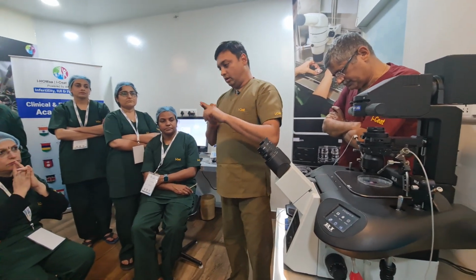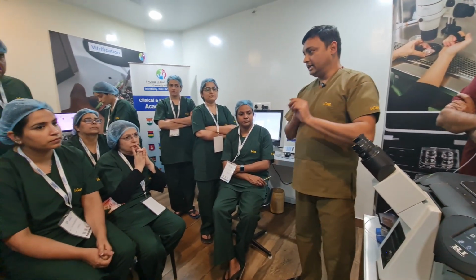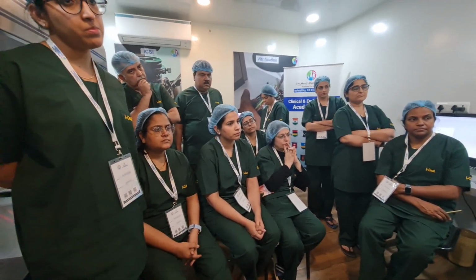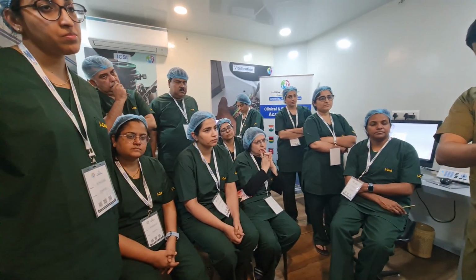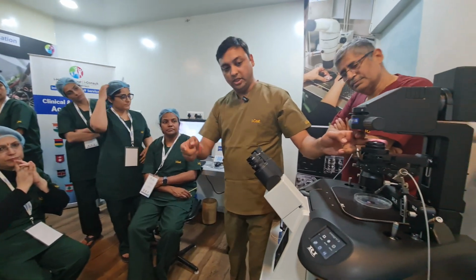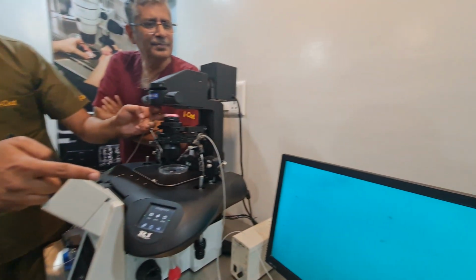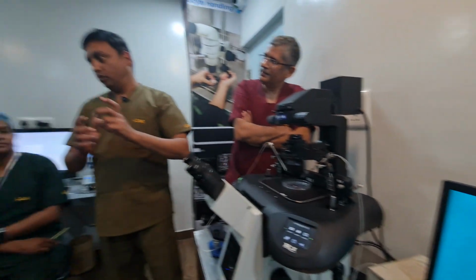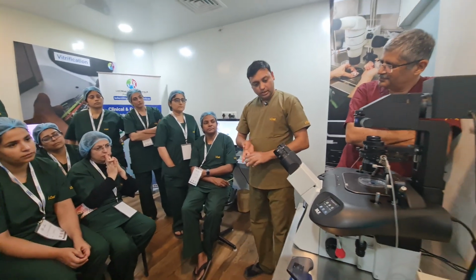If we go for Nikon or Olympus, the parts will be the same. The condenser will be the same. This is the condenser. This is the polarizer. What does the polarizer do? It will increase or decrease the brightness of your image, not the intensity. If you can see, I am just revolving it and the intensity is changing. Everyone's eyes have a different view, right? So once we set it accordingly, then we start working.